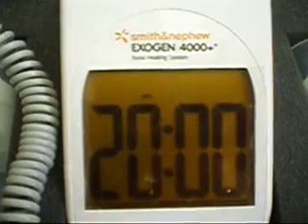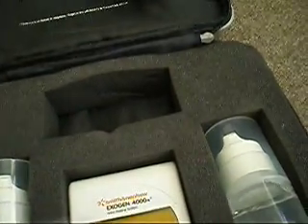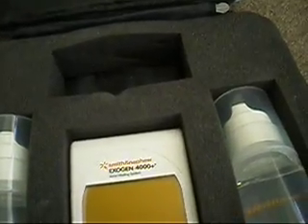This thing is good for up to 2,000 cycles. It's a sealed battery and you cannot get into the unit. When it's given to the patient for use, when you get through with it, you're done with it — no further uses. In other words, they don't take it back.